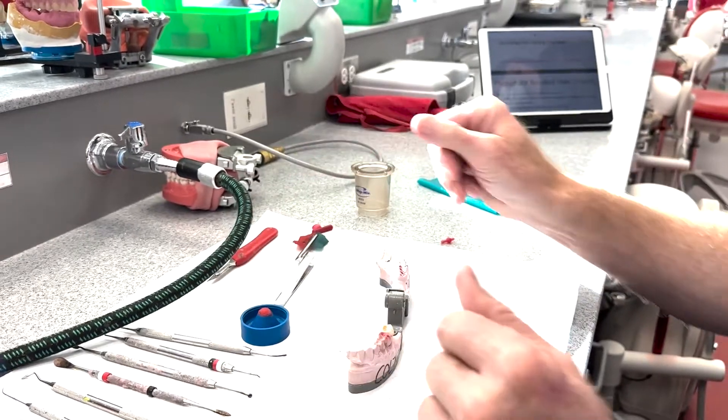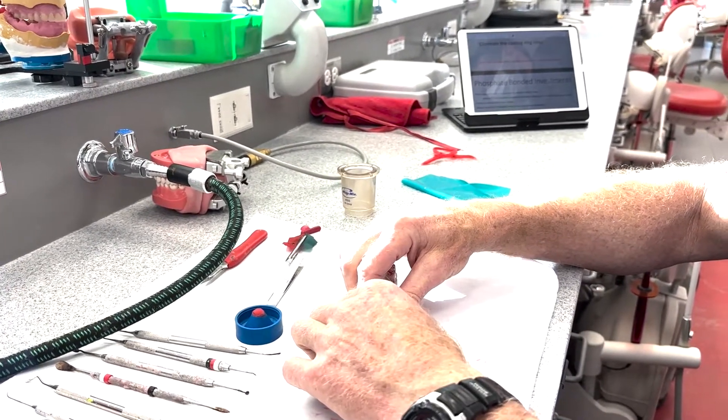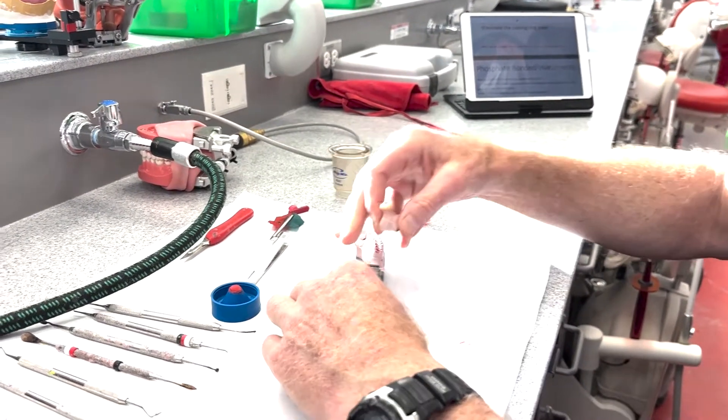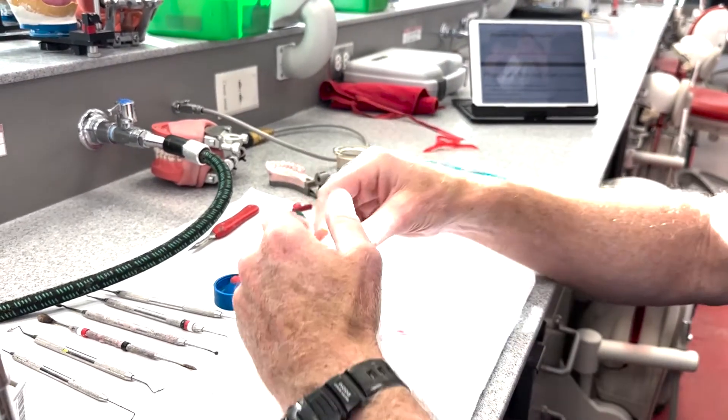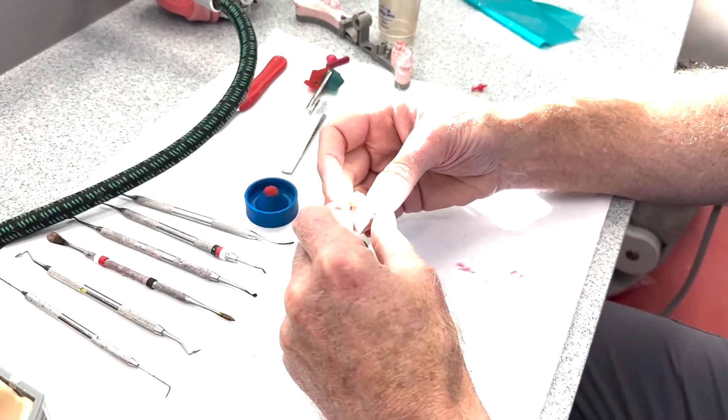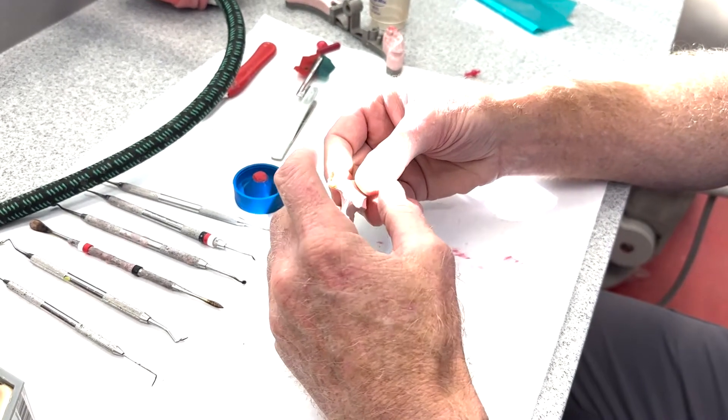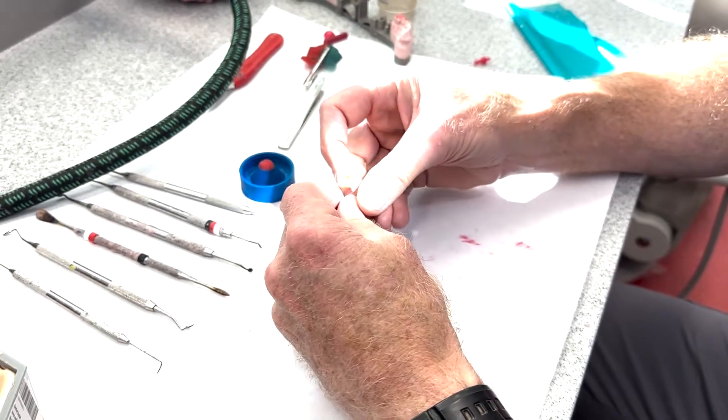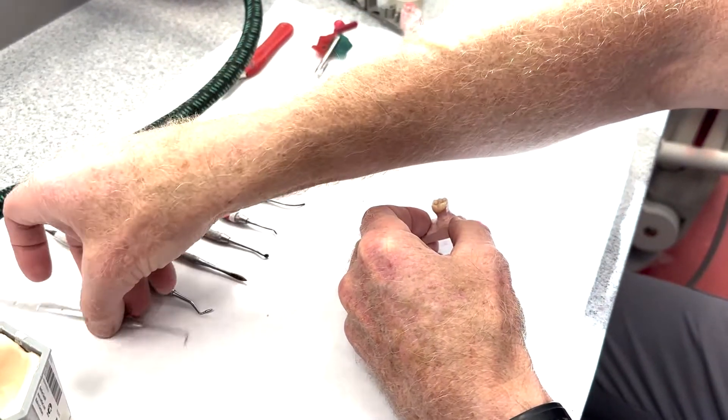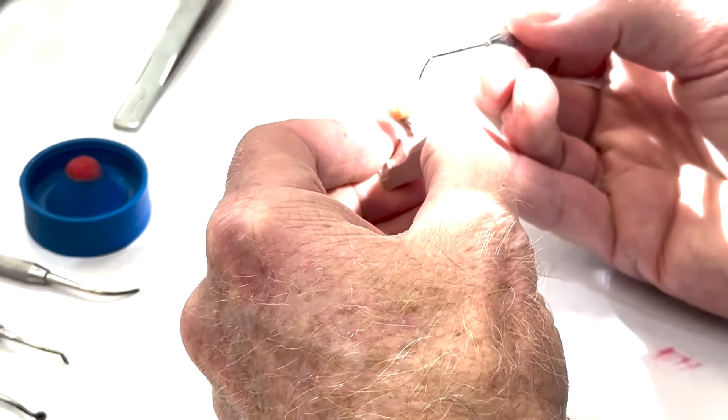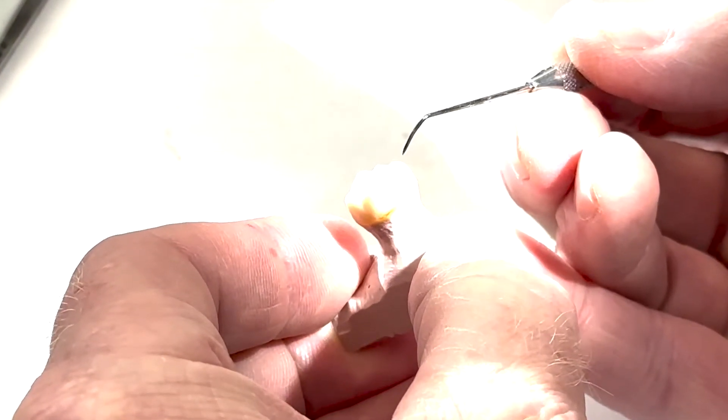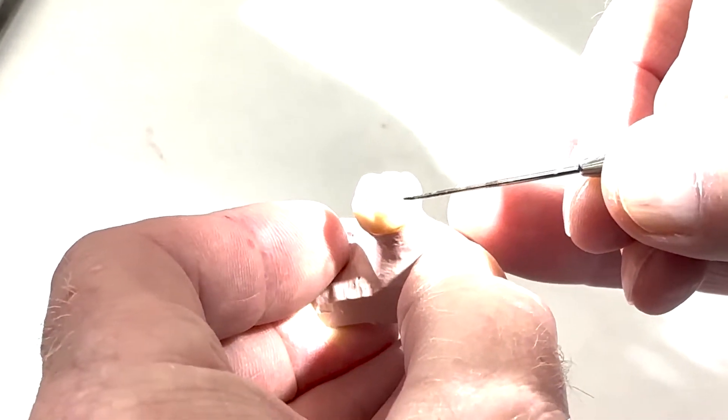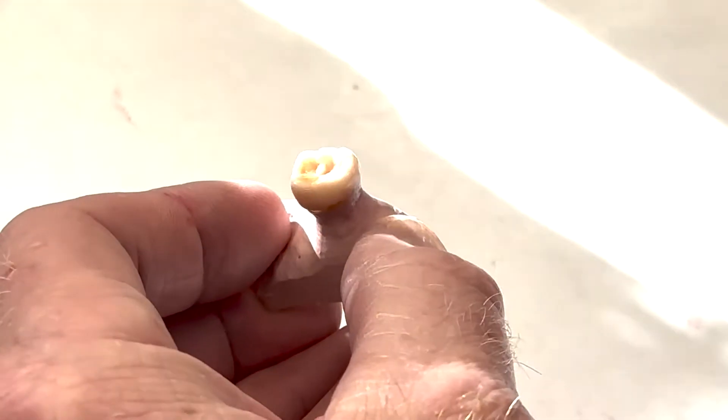Okay, so we'll set that aside. You've got this wax up just like you want it. We're going to carefully set this aside. You've done a test removal so we know we can get it off and on, and we've remelted your margins. It looks like you could sprue it from either the mesial buccal, which then you'd have more work to do afterward because it's a functional cusp, or the mesial lingual. Which do you want to do? Let's do the mesial lingual.